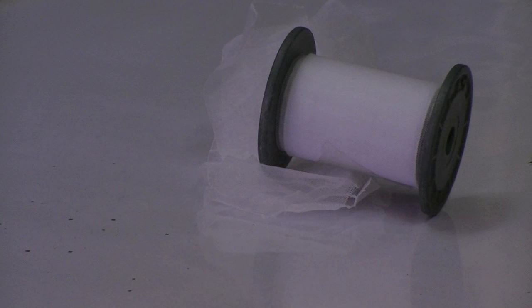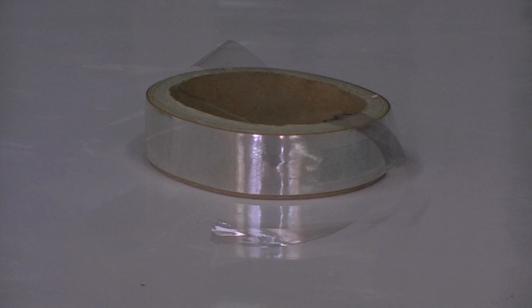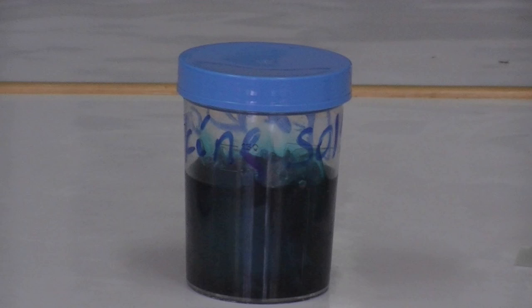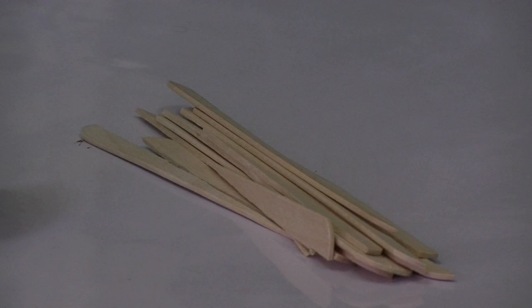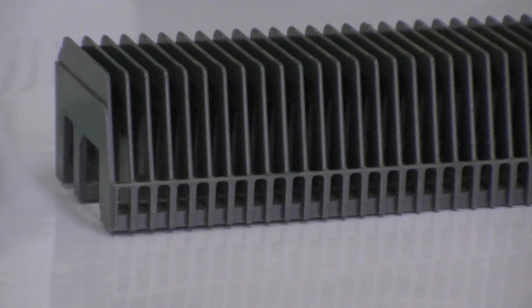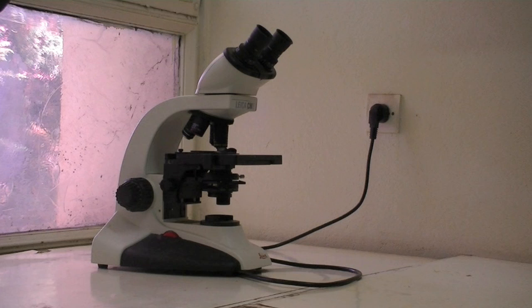A plastic screen with a mesh size between 60 and 105, hydrophilic cellophane, glycerol malachite green, a wooden tongue depressor, a device to hold the slides, and a compound microscope.